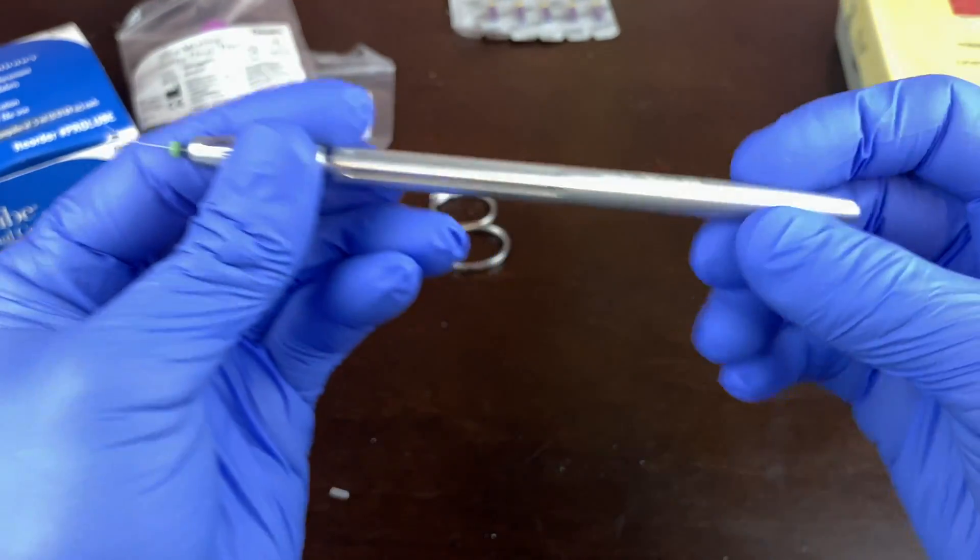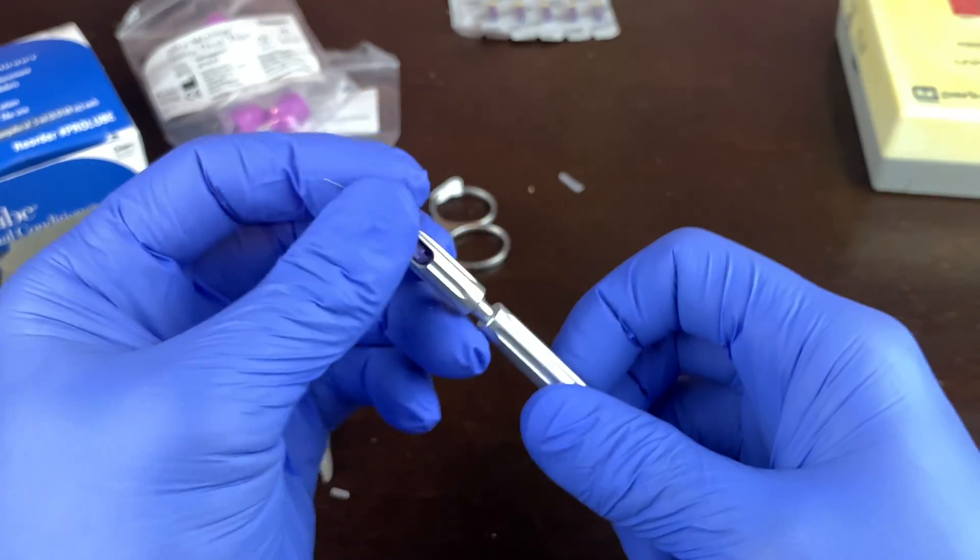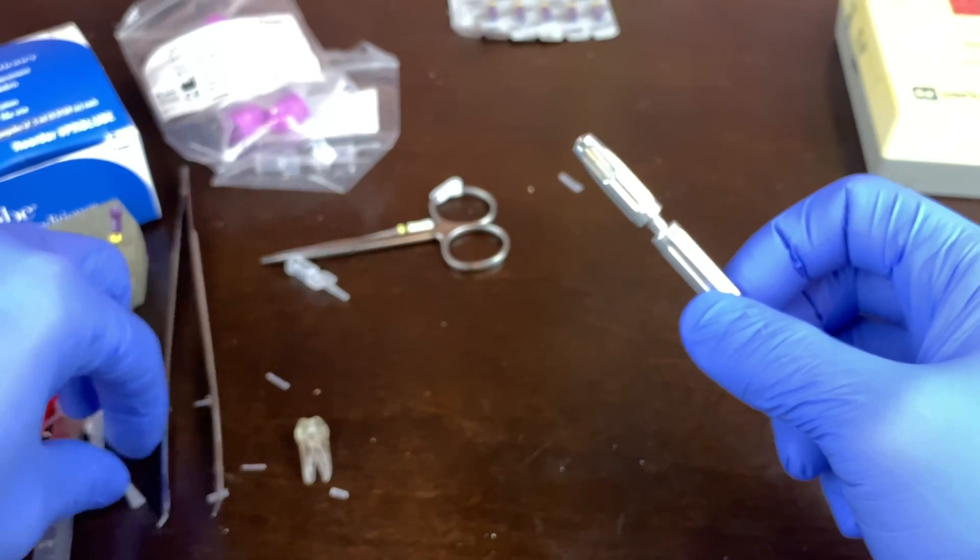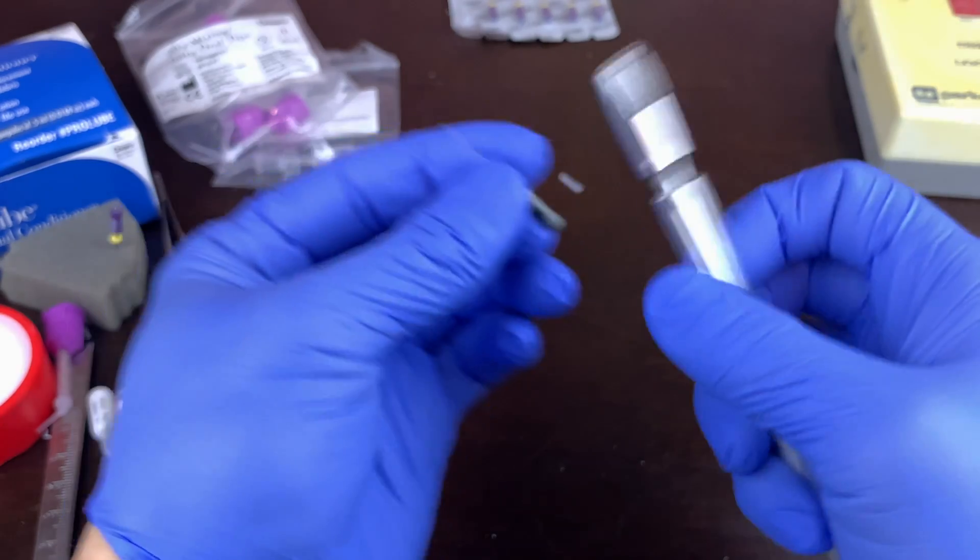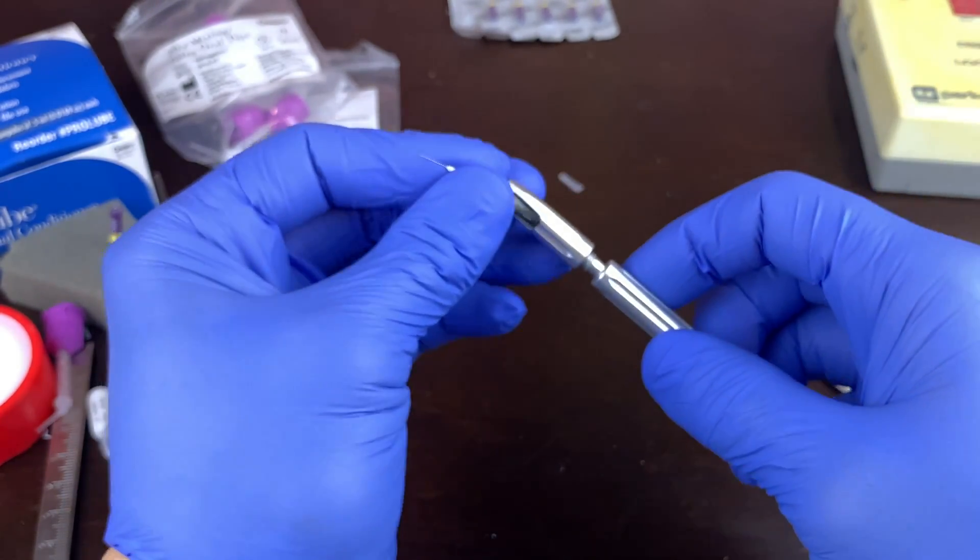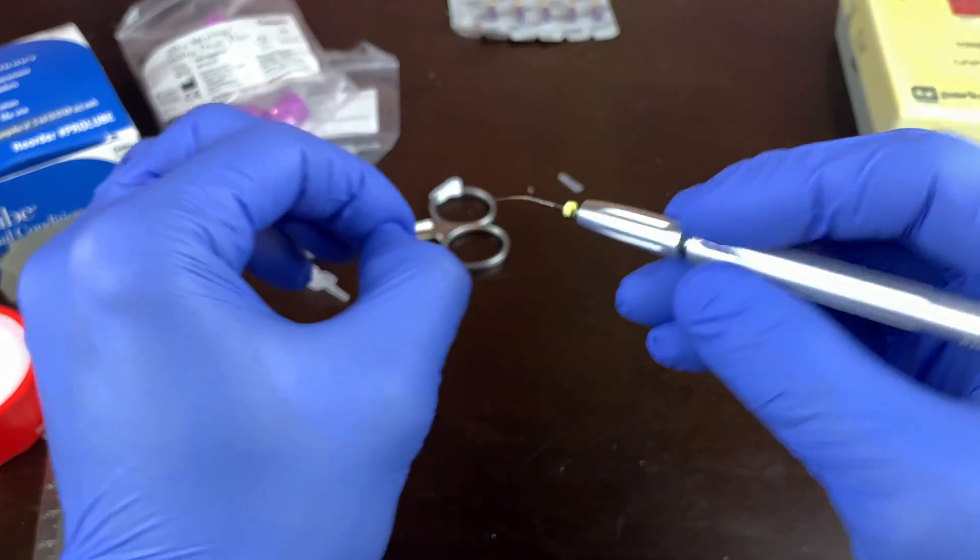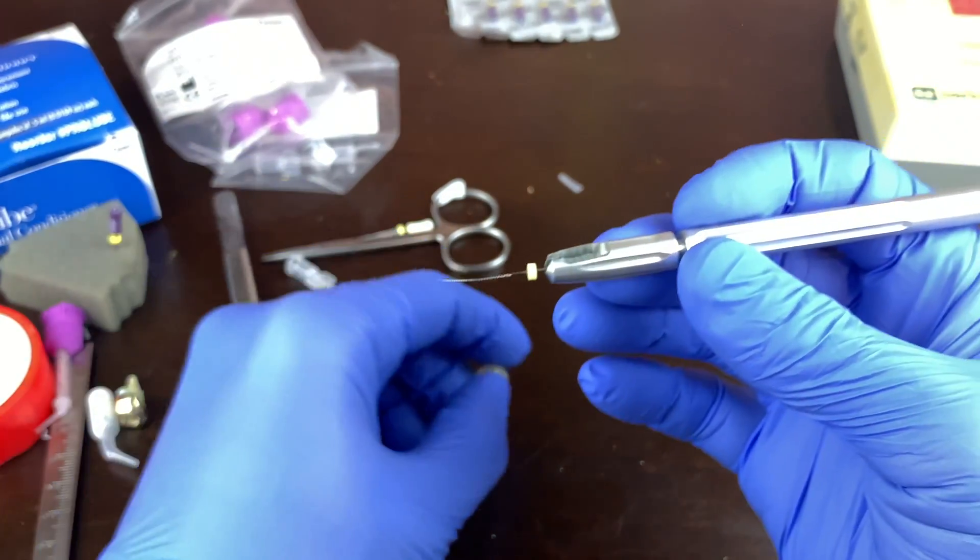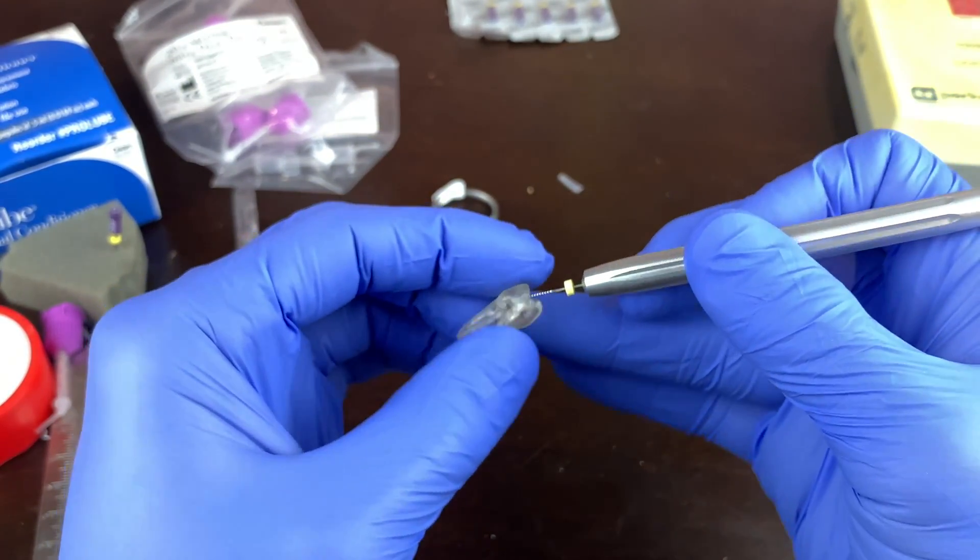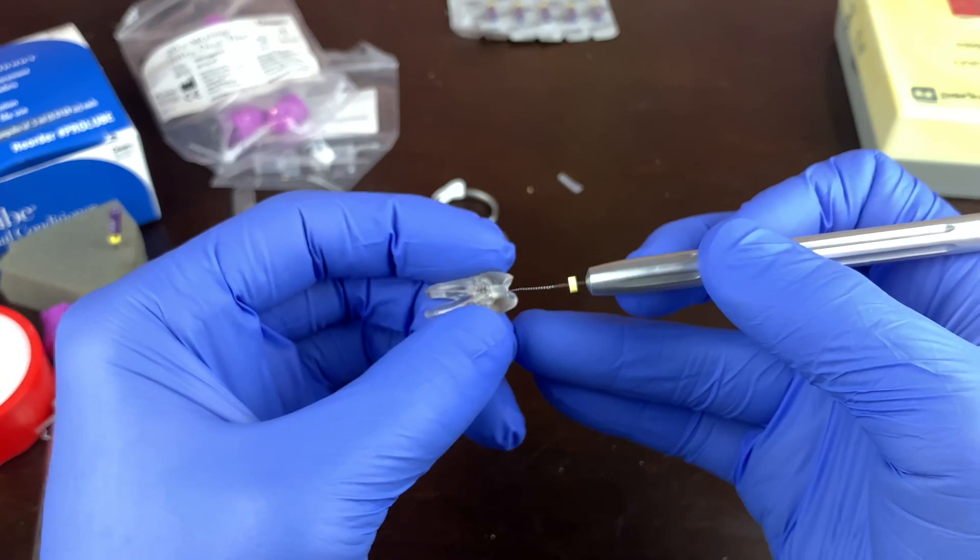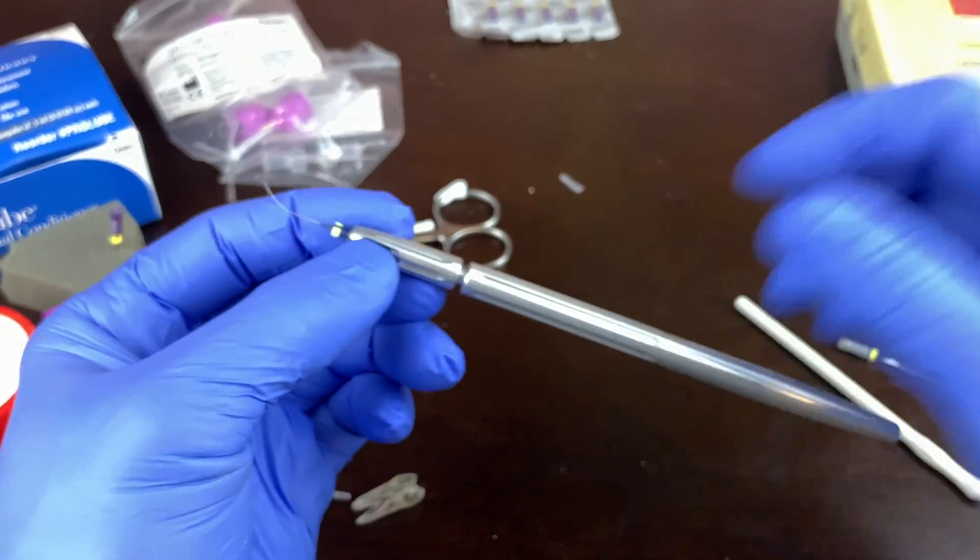Same as this. If you don't have these, I've found these floating around. These are called the endo handle. And you can take just a regular root canal file. I'm not going to use the fancy word of endodontic file. Let's put it right there. So it just essentially slides in. And then let's take that off of there. And then what you can do is bend it. So again it just gets rid of your finger out of the way. So let me know if you use these. I've never used them in practice. So I'm just showing them, just so you can get an idea. You have some of the little neat gadgets out there.